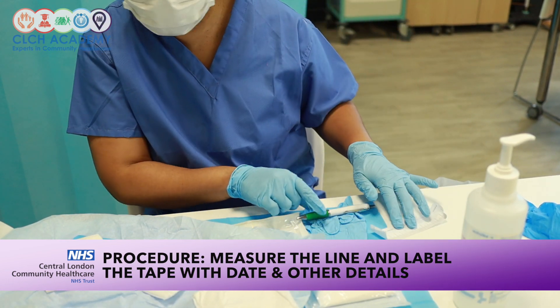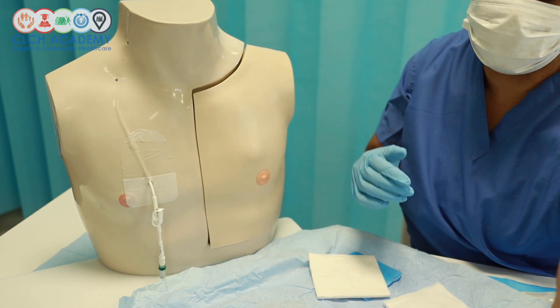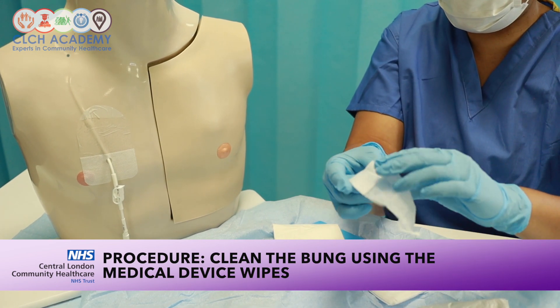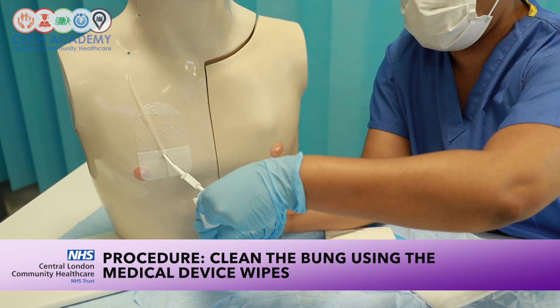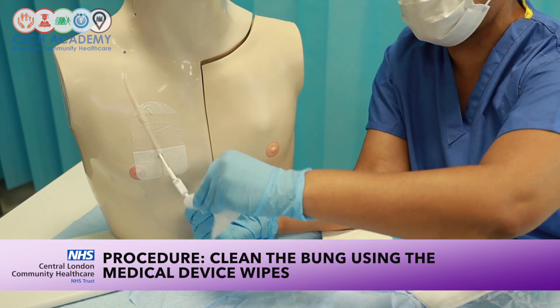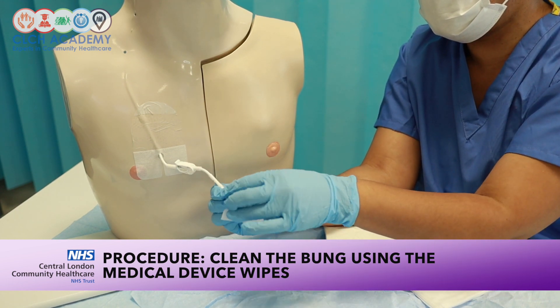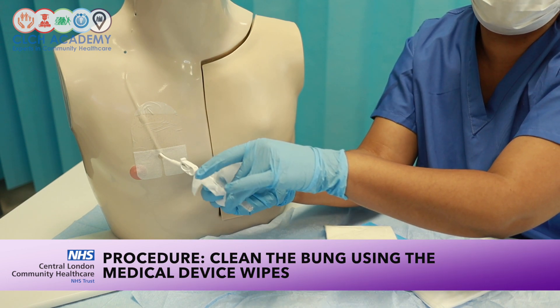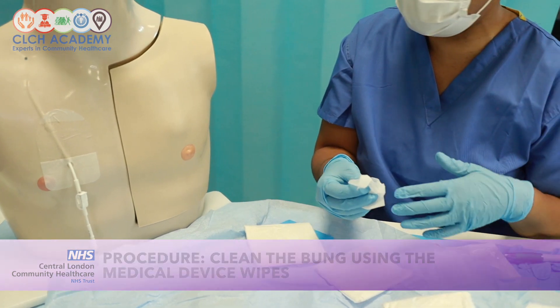Having a quick look at the hub — it is dirty and needs cleaning. I always use a chlorhexidine and alcohol wipe for medical devices. The process is to get right around the hub using a clockwise and anti-clockwise action, scrubbing the hub for approximately 30 seconds. I'll also move along the line to clean any mucky areas, then allow it to dry for 20 to 30 seconds to ensure decontamination.